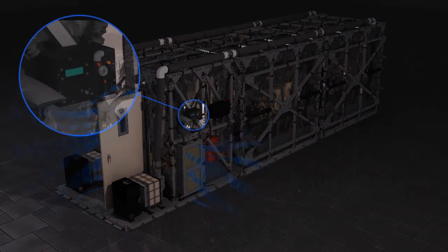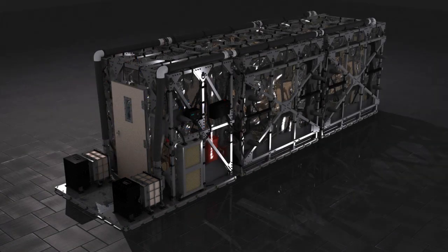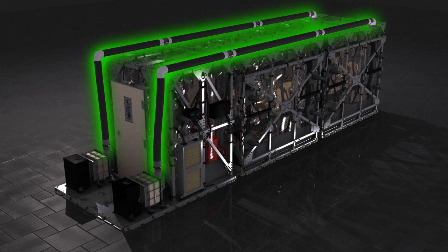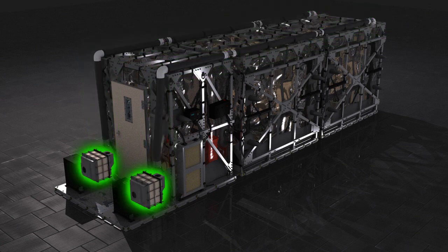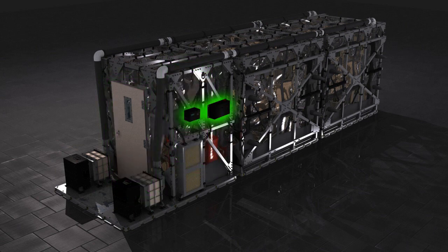An alarm system is mounted on the outside of the TIS to alert the medical personnel when negative pressure has been lost in the modules. The major components of the filtration system are the inlet filters, air management duct system hoses, primary filters, blowers, sealed and ventilated doors, and anteroom and isolation room pressure monitors.